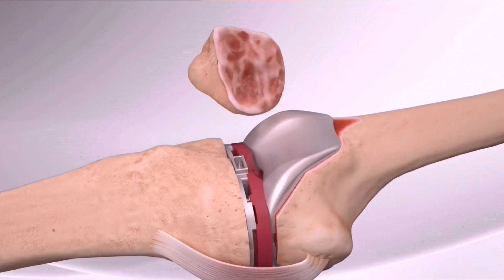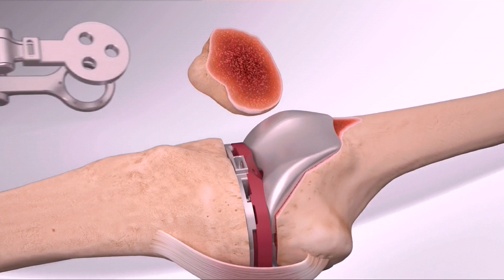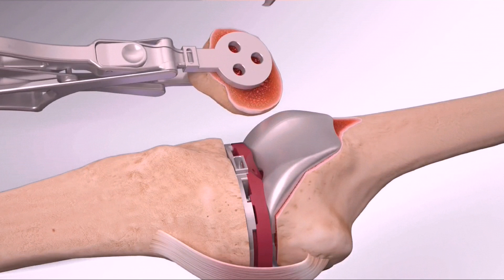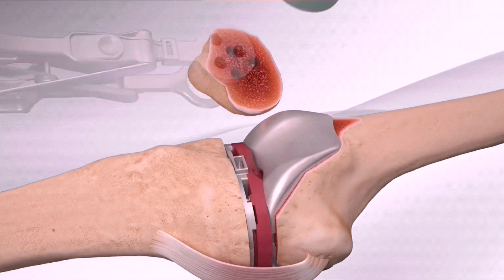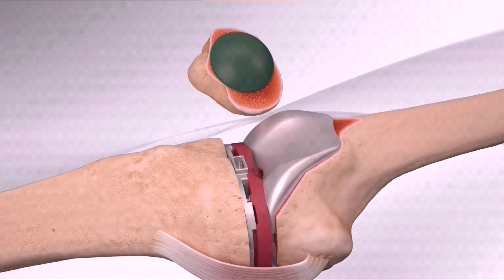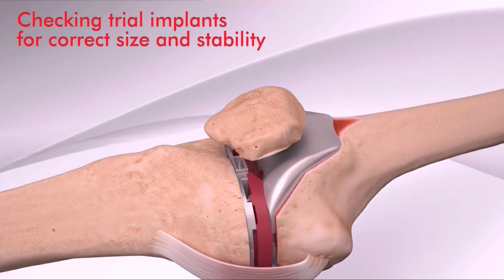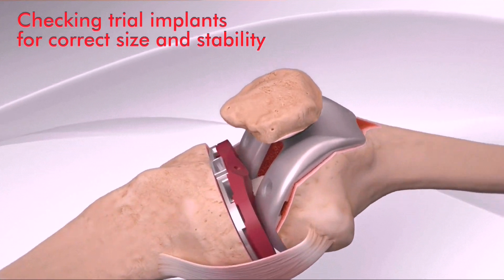Next, your doctor prepares the patella to accept the implant. A trial implant is placed on the patella and the knee is checked for proper implant size and stability.